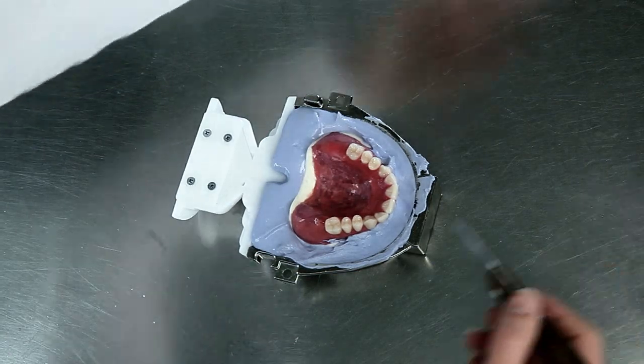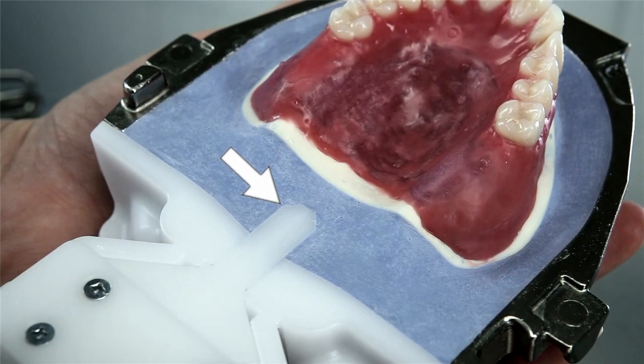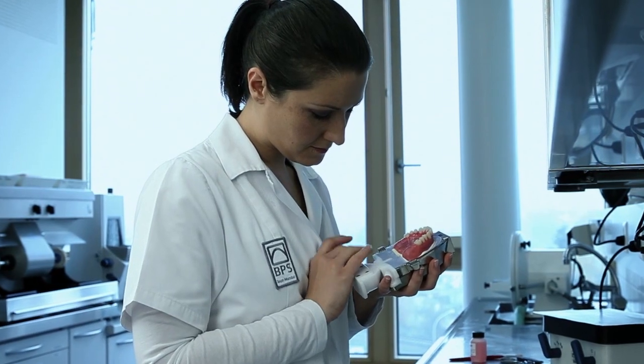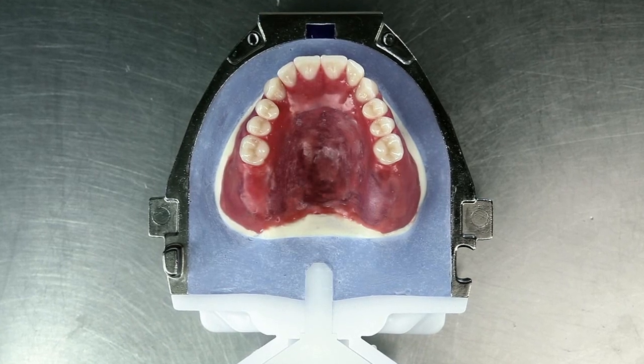It is particularly important that the excess former half is flush embedded in stone. If this is not done, stone may chip off during the subsequent working steps and the flask will become untight.